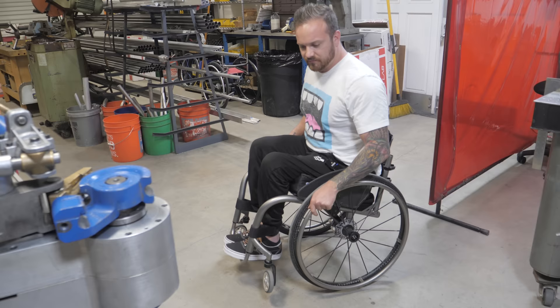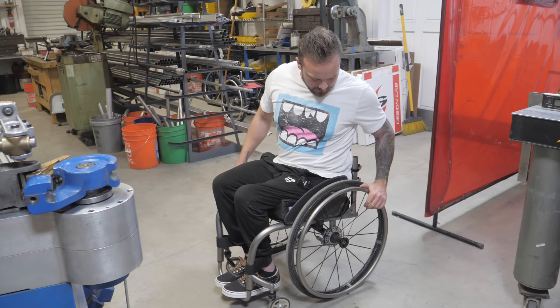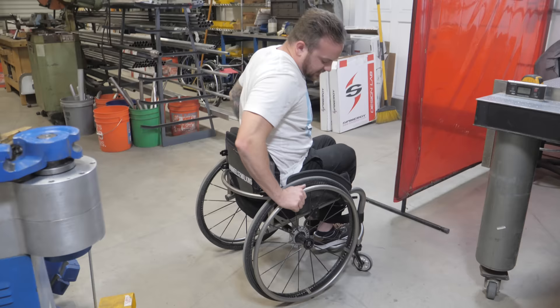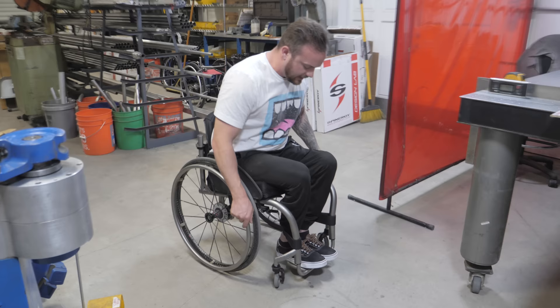I really like my center of balance in my bucket because I can just kick it up, but it still feels like I'm too short — like compact. I am a fan of my bucket depth and the rigid back, but I'm also open to trying new things. Clothing guards are awesome. I really like my taper, but I always find my feet going to the left. I think that might have to do with the fact that my feet don't fully touch down towards the back — only towards the front.